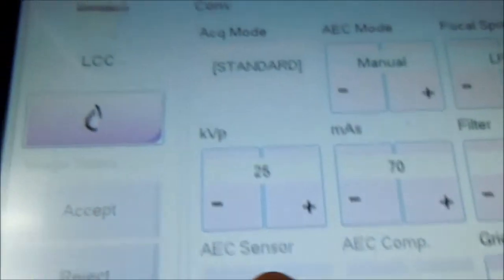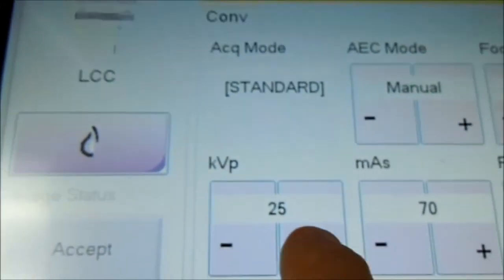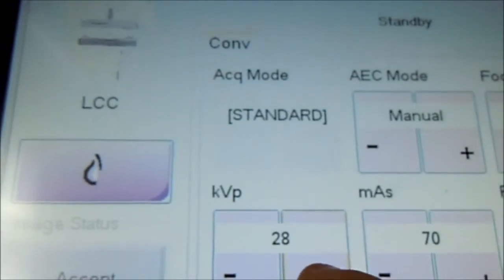Now we adjust to 28. Press reject. I'm going to select 28. That's 70. Take another shot. Measure it, and we get 29.68.